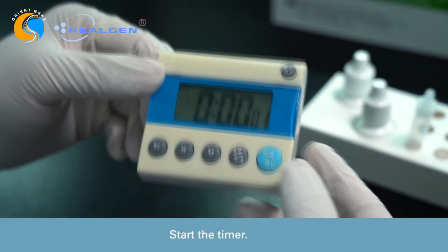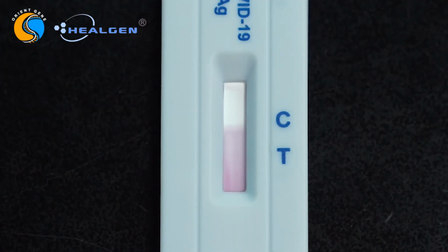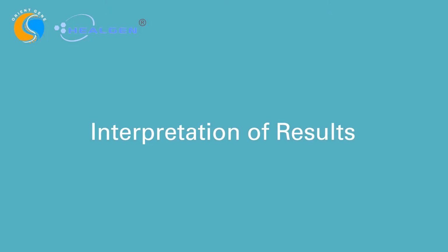Start the timer. Read test result in 15 minutes. Do not interpret the result after 20 minutes. Interpretation of results.